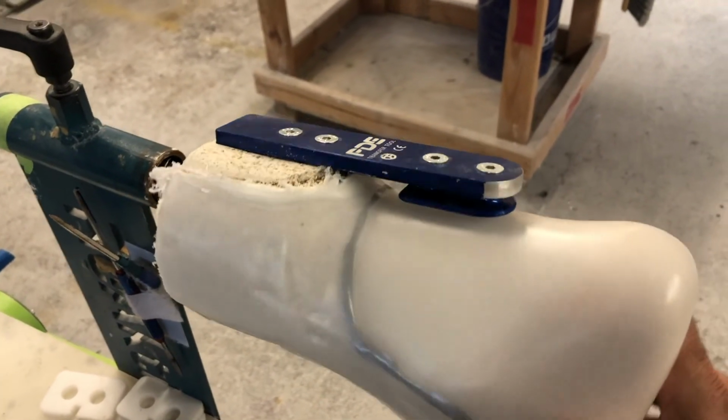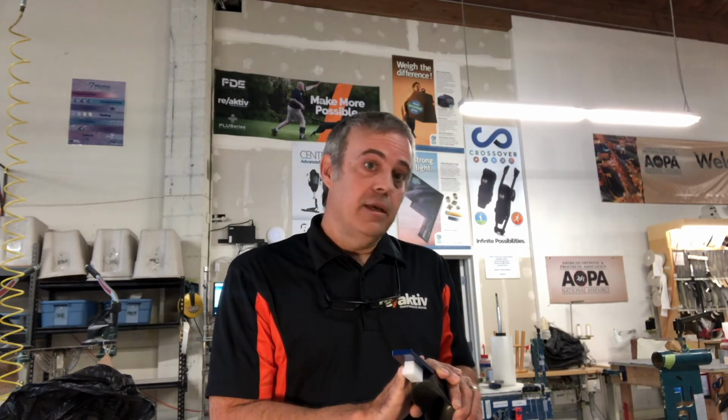What this gives me in terms of patient management that's so special, it now gives me the ability, once I have a model on file, to be able to create duplicate foot plate components for an existing brace and not even require the patient to come in to do it.